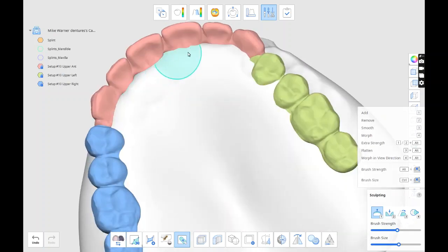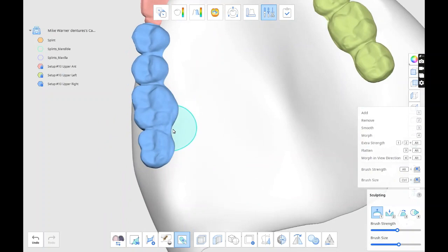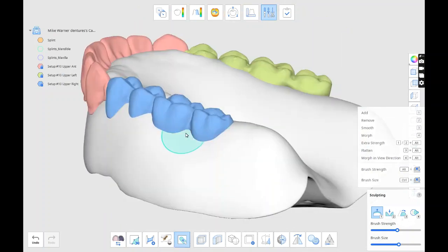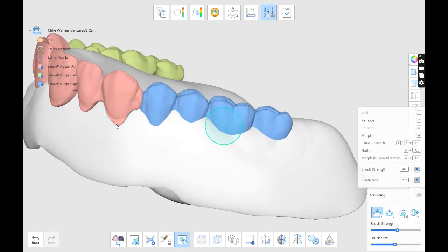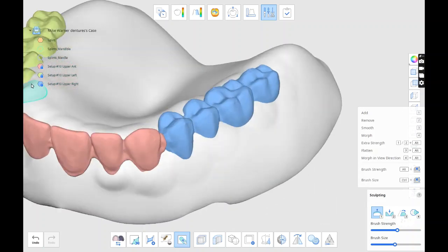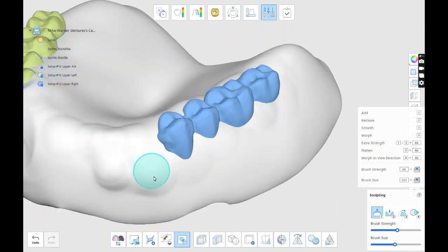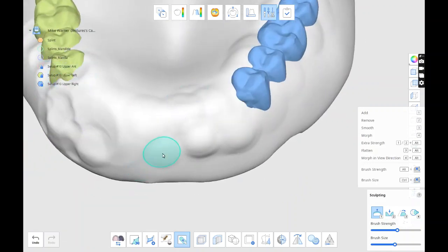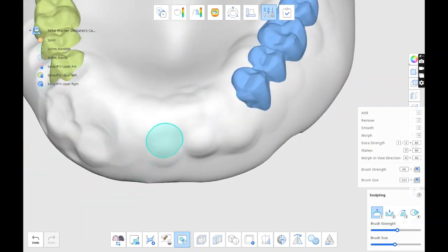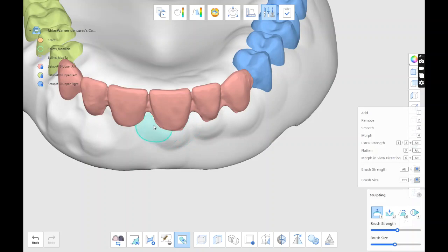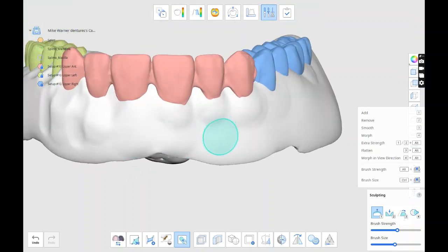I like the concept when I can bring in the upper and the lower teeth together and the occlusion is already on. In Exocad it's a little tedious - I don't have the denture version, I have a bar and module or whatever, implant. So you have to do - for me, I have to do the upper jaw, then bring the lower jaw in and make the lower jaw fit the upper jaw.